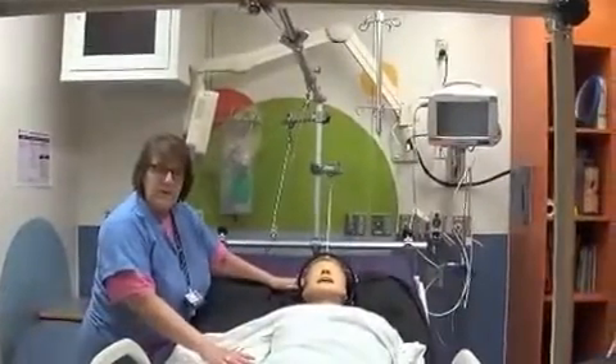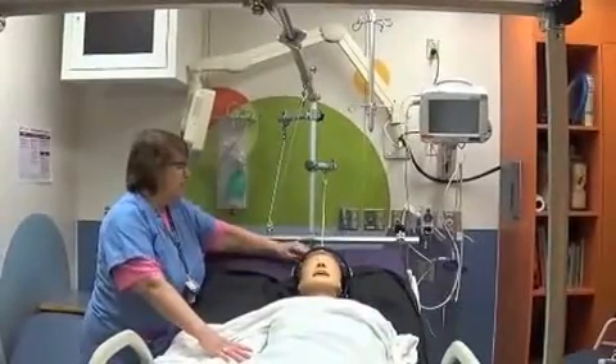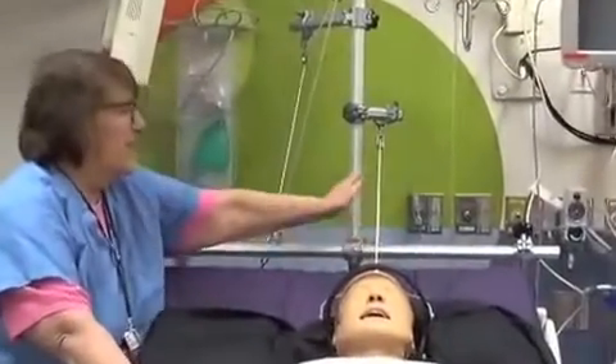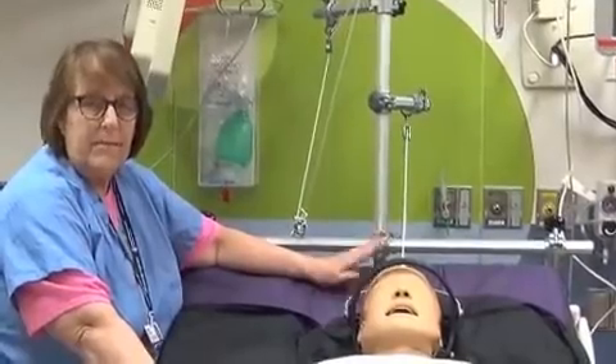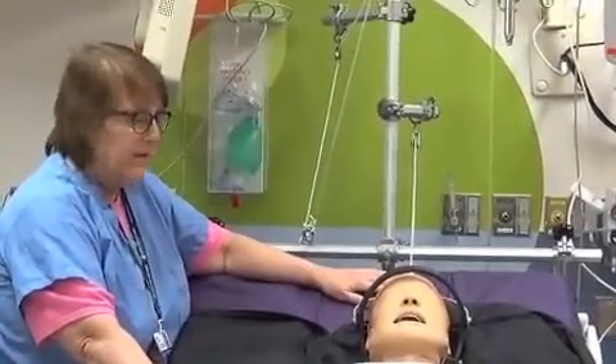Things to look at to make sure that everything is set for the most amount of tension possible: the cord should not be touching the bed here, nor should it be touching any of the bars. That's something that I set up every time, but if there's a change you would just get a hold of one of the orthotechs and we would fix that for you.